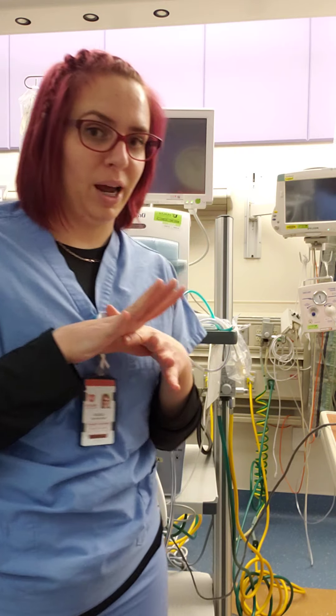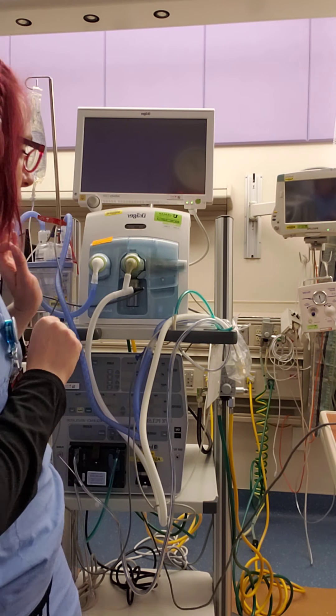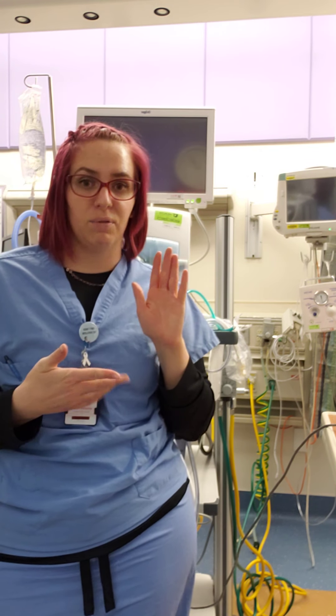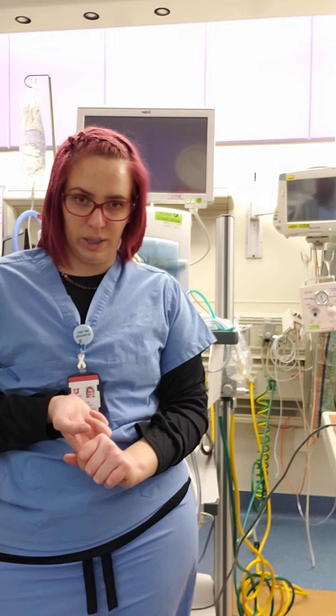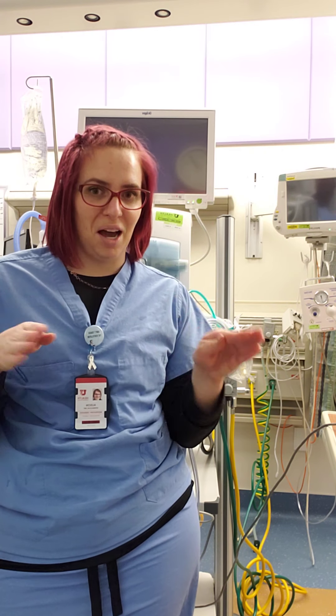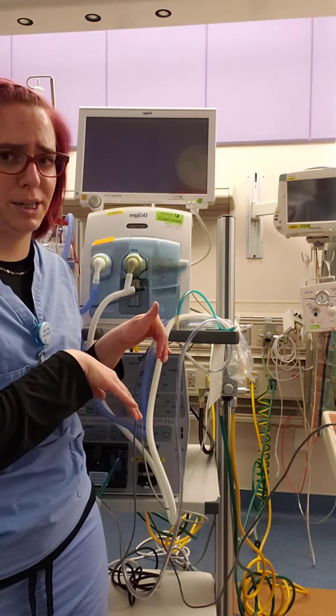So we are now going to set up the jet ventilator. As with any ventilator for mechanical ventilation, we have to have pneumatic and electronic feeds. You'll need to plug in both the jet and the Draeger electronically and also both pneumatically, so you need four adapters — two oxygen and two air, one set for each ventilator.